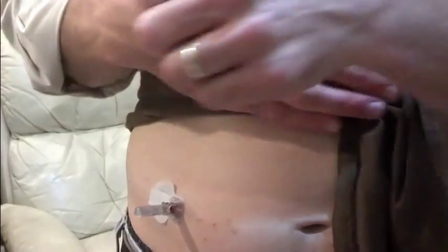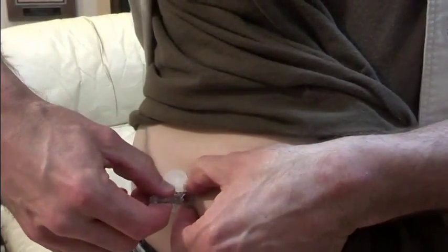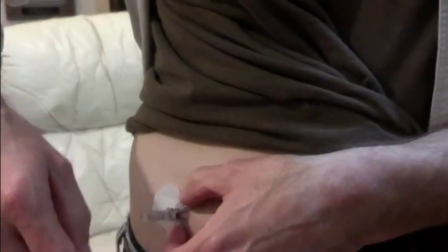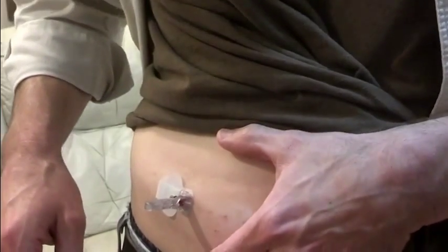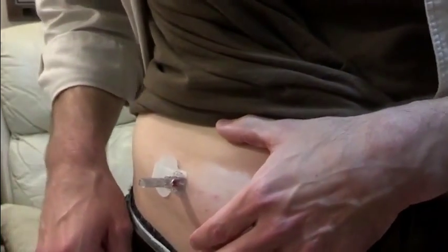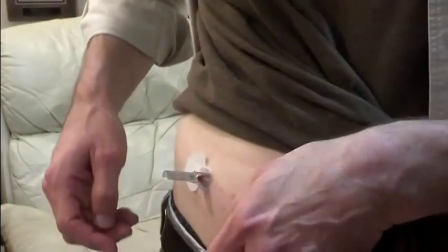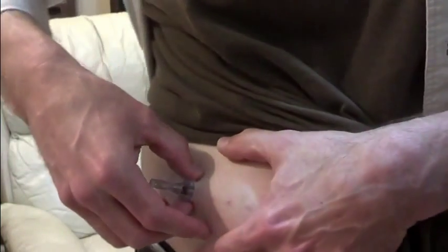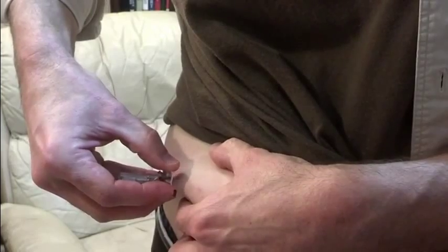I am twisting and it's not releasing. I could get some pliers and twist this, but I'm actually afraid that the plastic would break and I don't want something to happen that would hurt me worse than this is hurting right now. I just wanted to show you that I am doing everything I can to remove this the proper way. I'm going to stop talking now and just yank this out. And this is hurting like a son of a... Gah.